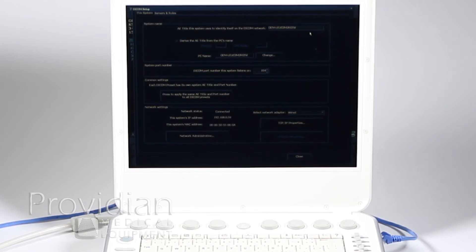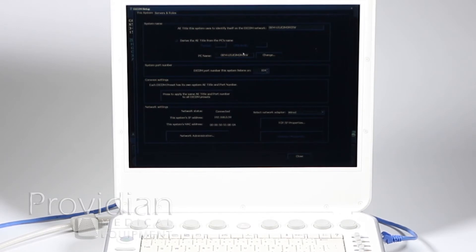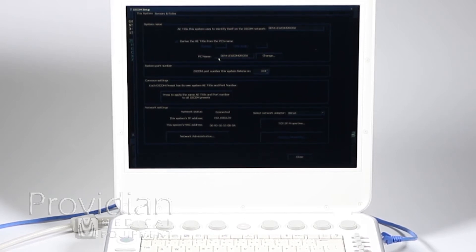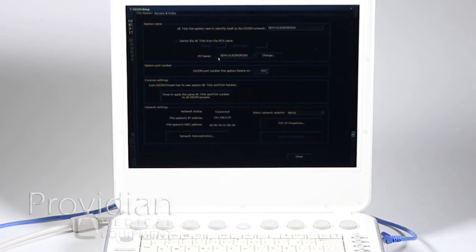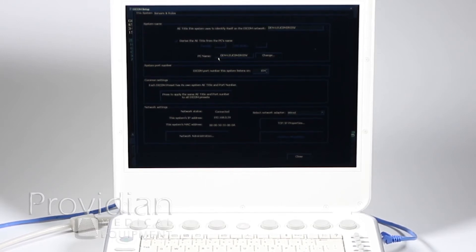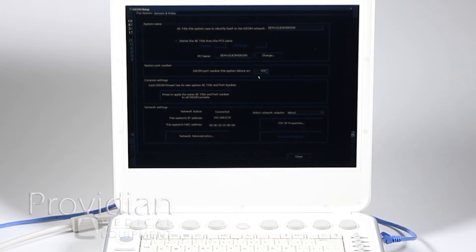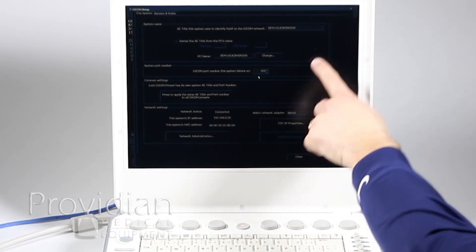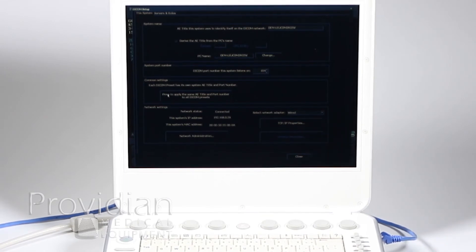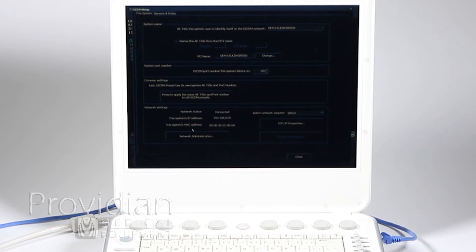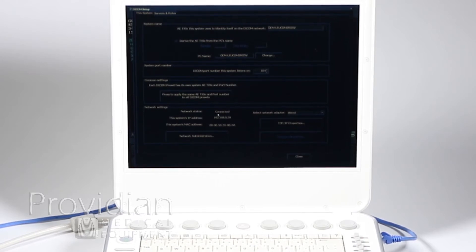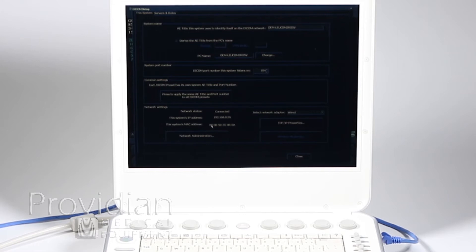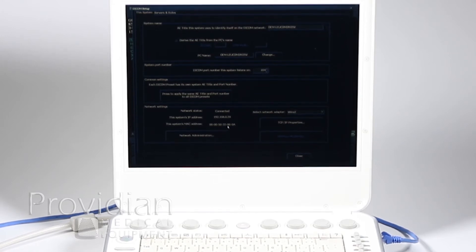I've got all sorts of stuff that looks quite intimidating. The first thing I'll notice is all this stuff about the PC name. Don't worry about this at all unless your IT person requires it or the PACS provider requires it. Generally, the only time you'd need that is in a large hospital environment. The system port number, leave that alone. This is not the same port number that they gave you from the PACS provider.